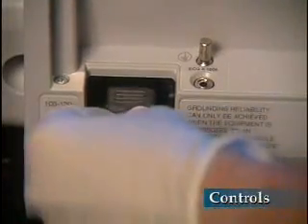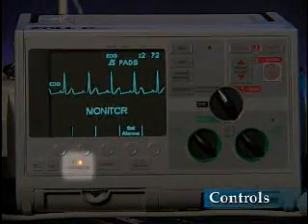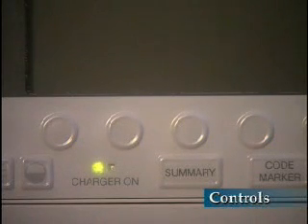When the M-Series unit is plugged into an AC mains or a DC power source, the charger-on indicators show the status of the battery and charging. The orange charger-on indicator illuminates continuously whenever the device is off and the battery is charging, or on with the battery installed. The green indicator illuminates continuously when the unit is off and the battery has been fully charged. The green and orange indicators illuminate alternately when no battery is installed or when a battery fault has been detected. You will learn more about batteries and power later in this program.